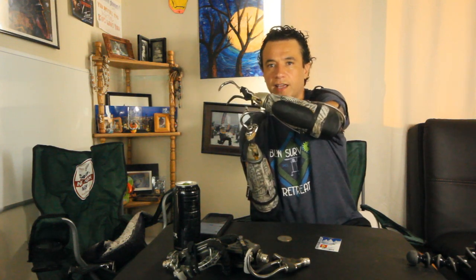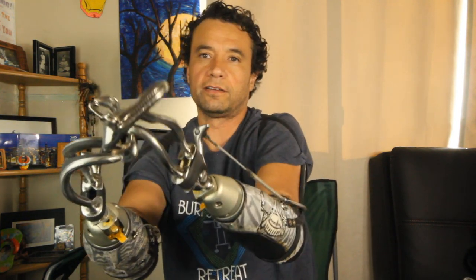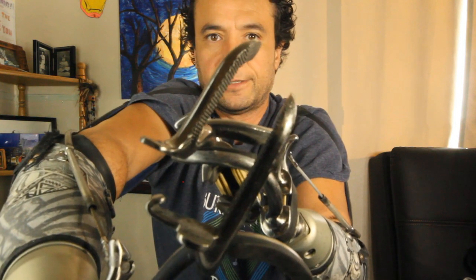She asked about all the terminal devices — she called them hooks but I'll say terminal devices. A terminal device is what's on the end of your socket. This is Iron Bill — it looks like a bird, has an iron bill as his head, a long beak. This is the farmer's hook. It has a little notch to hold a nail, the inside grip is serrated, and there's another surface on the front — I'm going to call that the platypus bill.